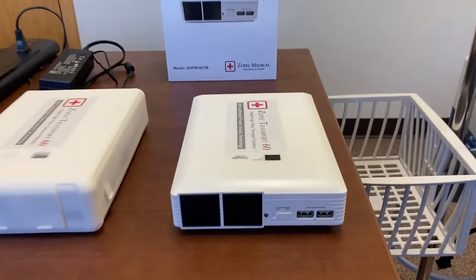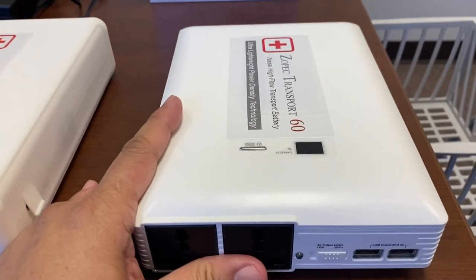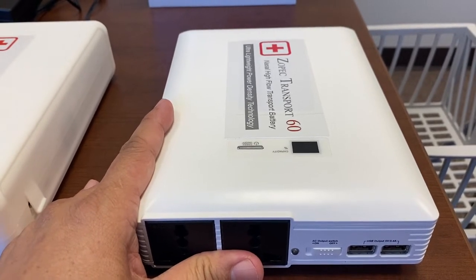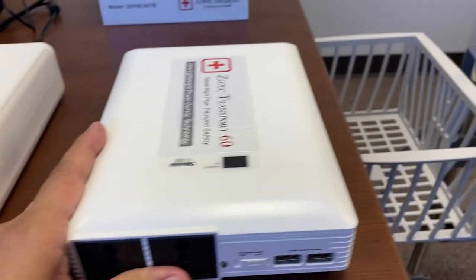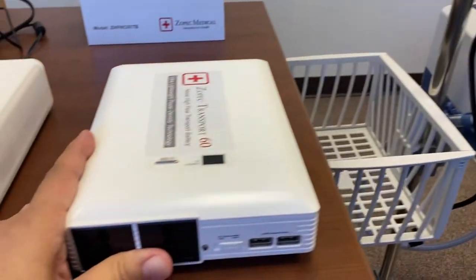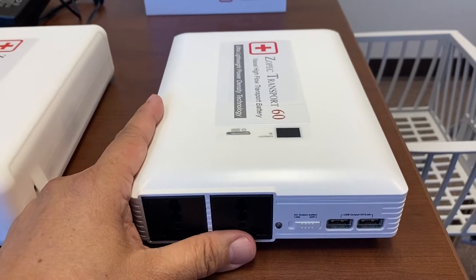The ZOPEC Transport 60 battery is called Transport 60 because it can transport 60 minutes at 37 degrees Celsius and 60 liters per minute for AirVo2 as well as some other nasal high flow devices. It's very small and powerful.